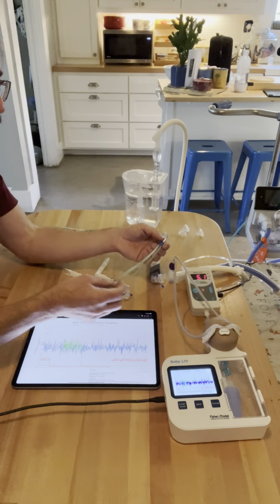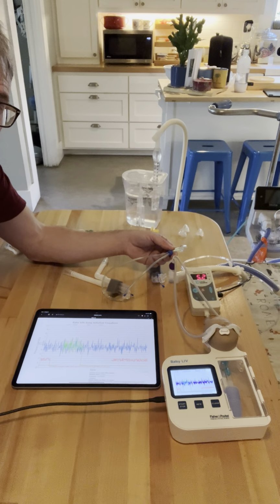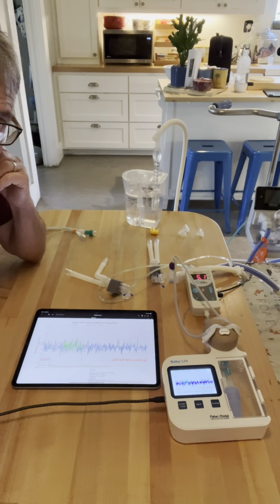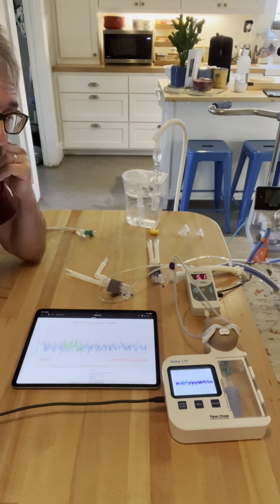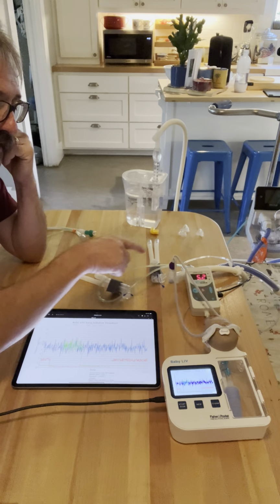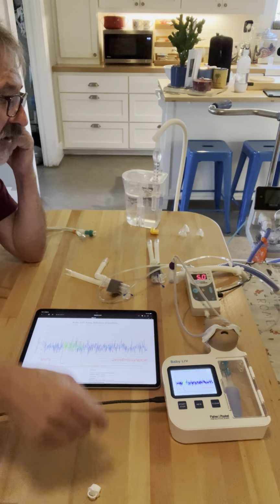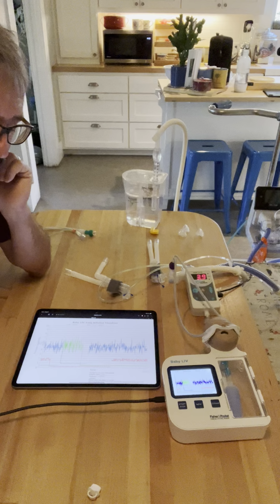So the purple Optiflow and the blue ram worked exactly the same because they have the same percentage of occlusion. But we're also faced with the same problem. The problem is now we have close to 100% occlusion in theirs, and the baby can't exhale against that because it's got a pacifier in his mouth. And when we take the pacifier out, a new wrinkle all of a sudden happens.